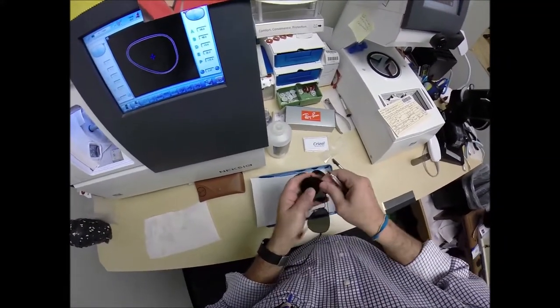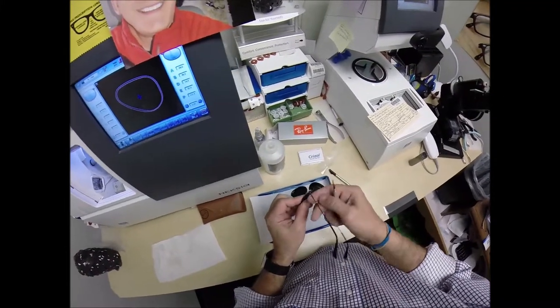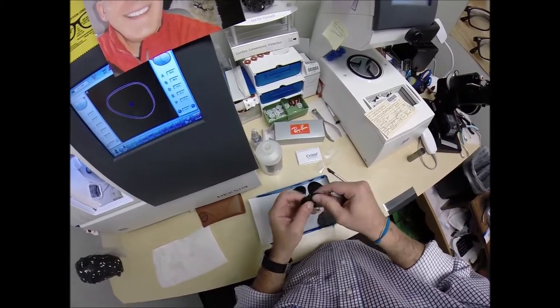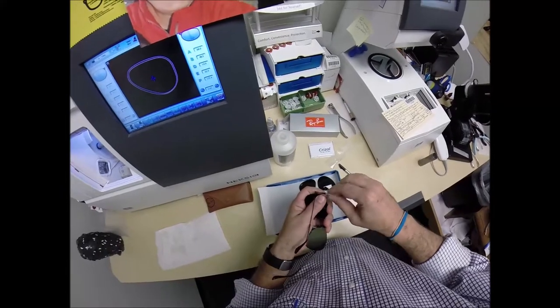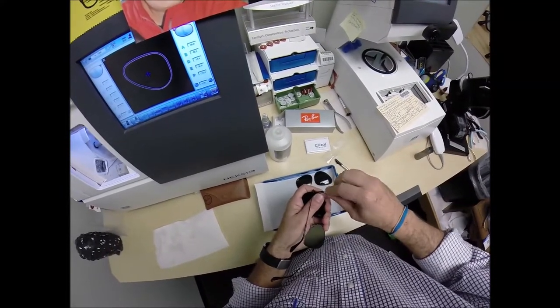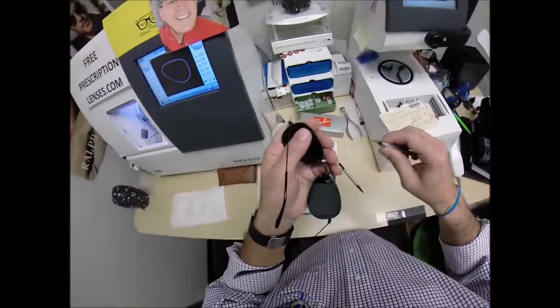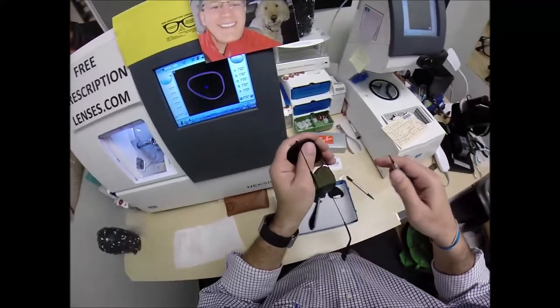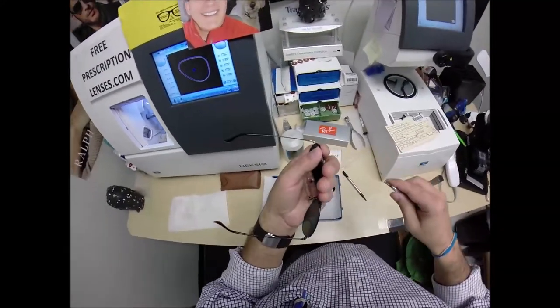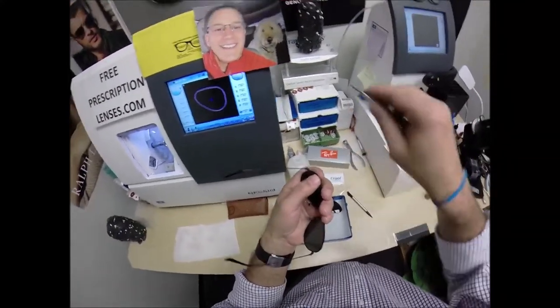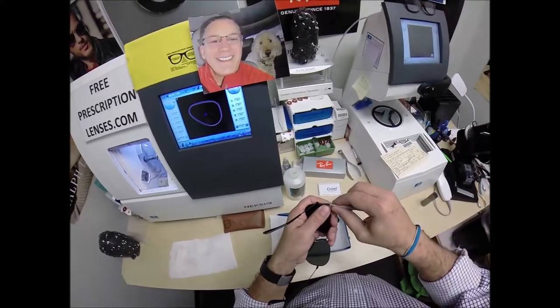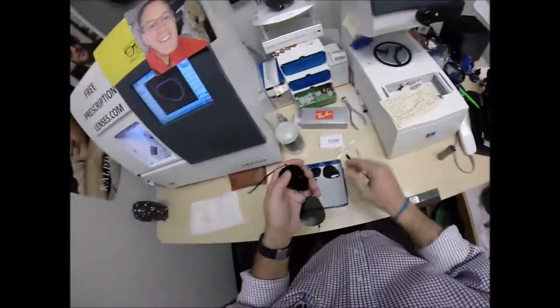And what do I do? I play in the mud with a stick. And feel good about it too. That's the crazy thing. Ignorance is bliss. So make sure everything is in there to run my thumbnail around to get the rest of that optical sawdust off. Tighten the end screw the hinge screw a little bit and then go back and tighten that one some more. Just like my dad taught me when you're changing the tire you don't tighten one lug nut back on you tighten all five a little bit at a time until you get all five on there tight so it's balanced on there same thing.